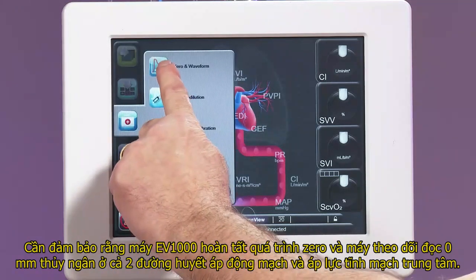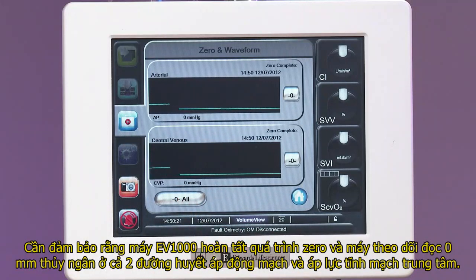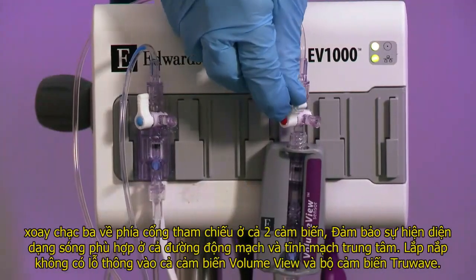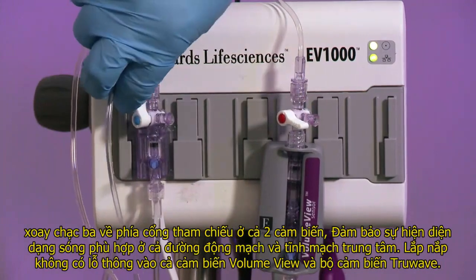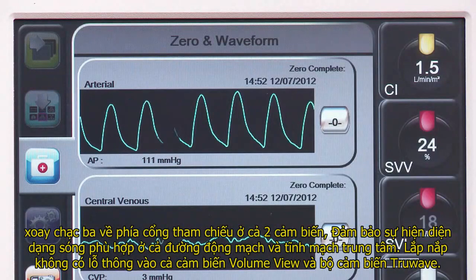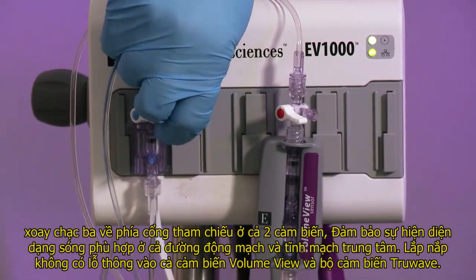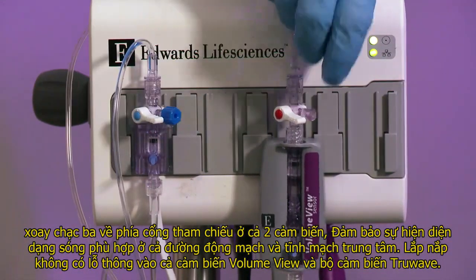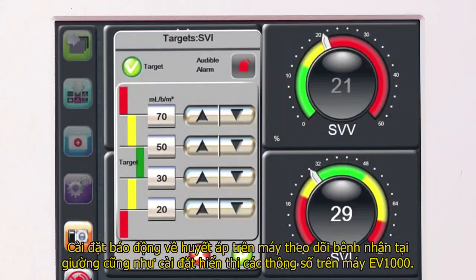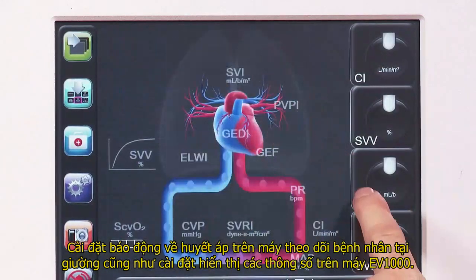Confirm that the EV1000 clinical platform reads 0 complete and the monitor reads 0 millimeters mercury on both the arterial and central venous channels. Turn the stopcock off to the reference port on both the sensor and the transducer. Confirm the presence of the appropriate arterial and venous waveforms. Reinstall the non-vented caps on both the VolumeView sensor and the TrueWave transducer. Set the blood pressure alarms on the bedside monitor, as well as the displayed parameters on the EV1000 clinical platform.